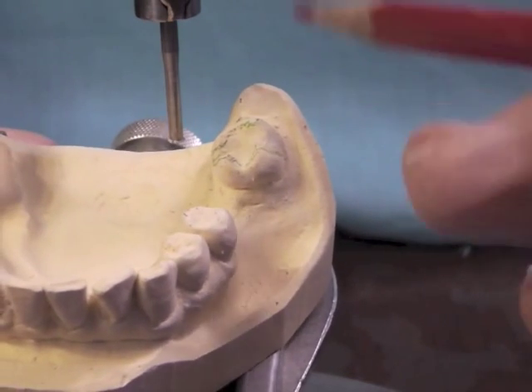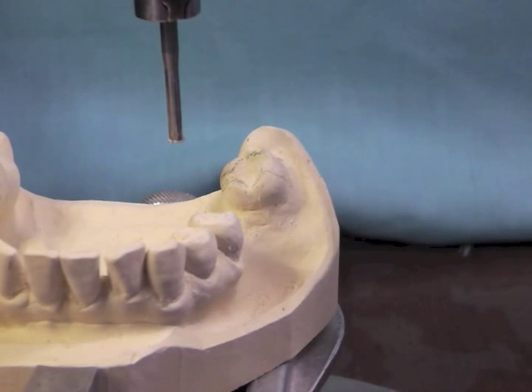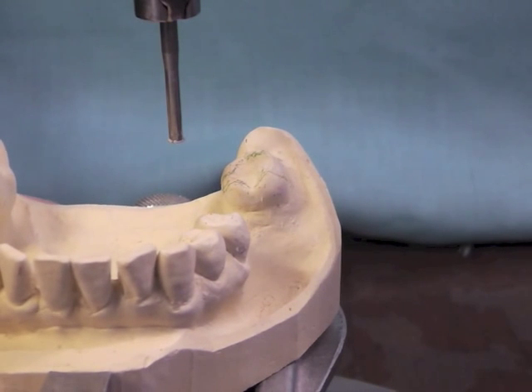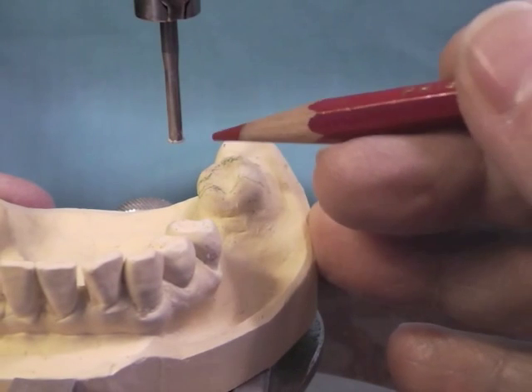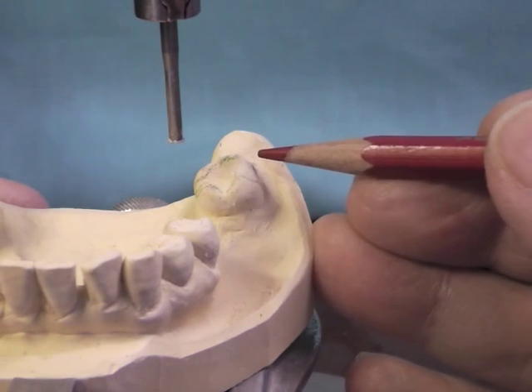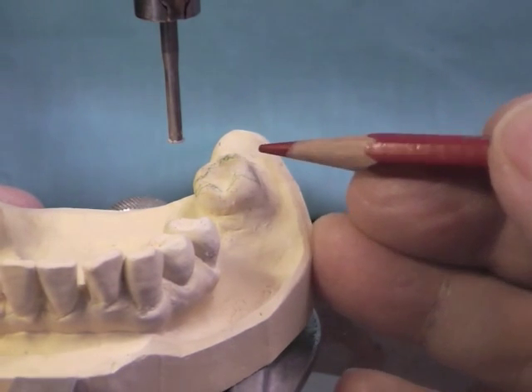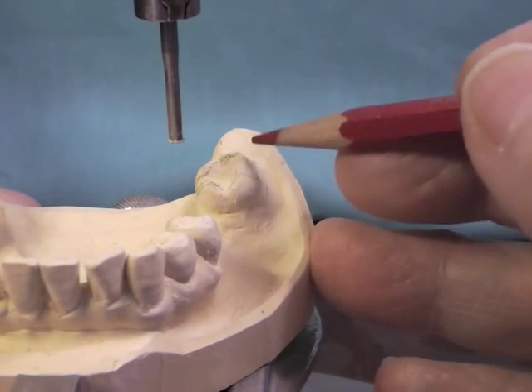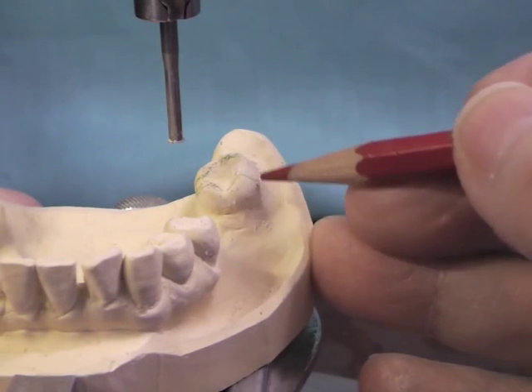Another thought: if you notice this green area, that's a restoration in that tooth — quite a large restoration. So this is a good tooth that would be a candidate for a crown. And if I make the crown, I can put the undercuts anywhere I want to, to an extent. But you have to think about occlusion and think about the positioning of the arms. Because if you're going to place a crown here and you want distal retention, ideally we'd like to have a mesial rest with distal buccal retention. But if you have to over-contour that crown when you build it and it's in occlusion with an opposing tooth, that may not be the way you'd want to go. You wouldn't have to reduce much of this surface except to make a good margin.